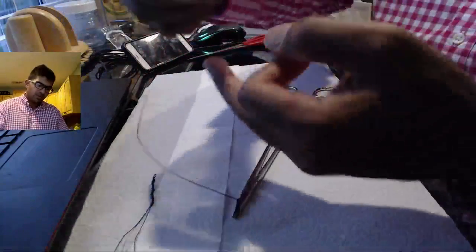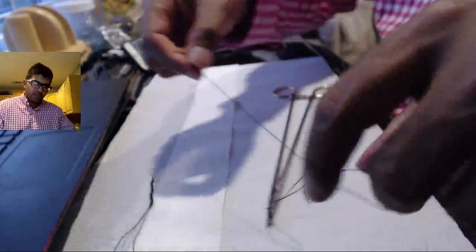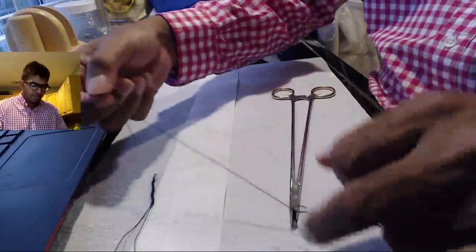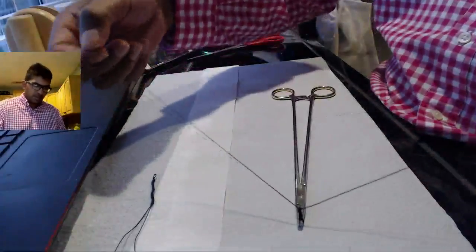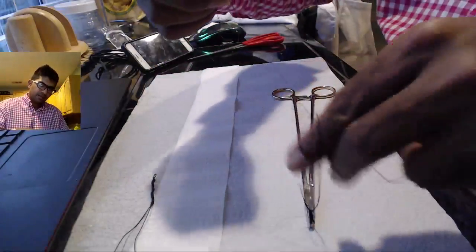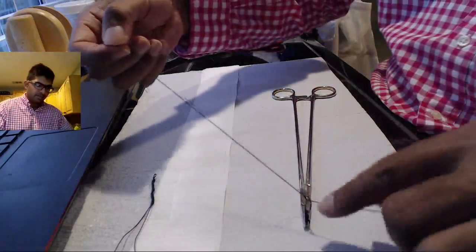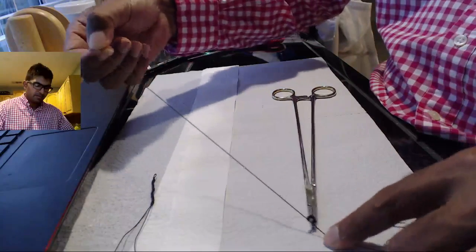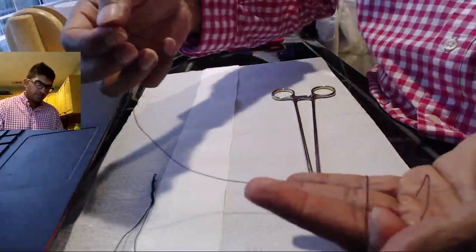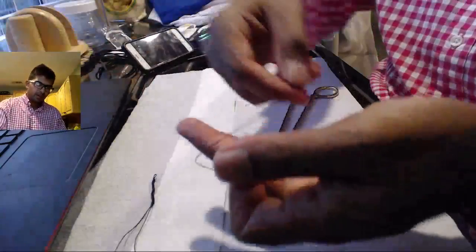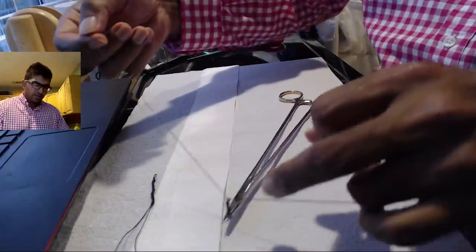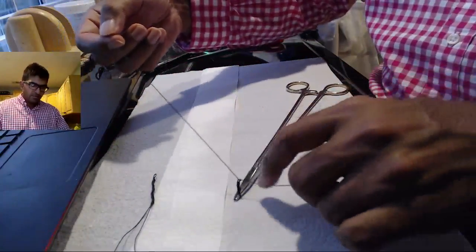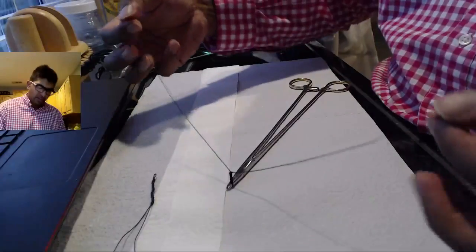And you can see that if I'm doing it in a consistent pace, the driver really does not move up. It may move left and right, but it does not lift up. Because again, I'm bringing the knot down. I'm not necessarily pulling it up like this. So, down. And again, I'm working well back. I'm not pulling up too hard on this. And by relaxing it, you can actually manipulate the suture and get your fingers out the way very easily. Again, nice and, see, look at the loops. I don't have a lot of tension on it. They're just coming up and around. My fingers are coming through. Let's see it again. Forehand. Nice and easy. Backhand. Again, it goes like this. Nice and loose. No problems. Dropped at that time. Fingers going front. And then down.